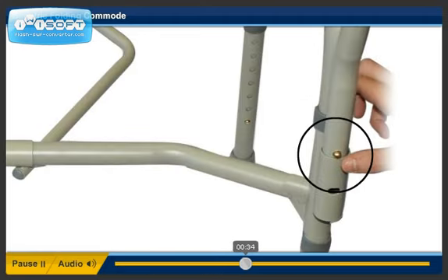Step 5. Push in the locking button on the backrest and insert completely into receptacle until it locks into place. Do the same for the other side.